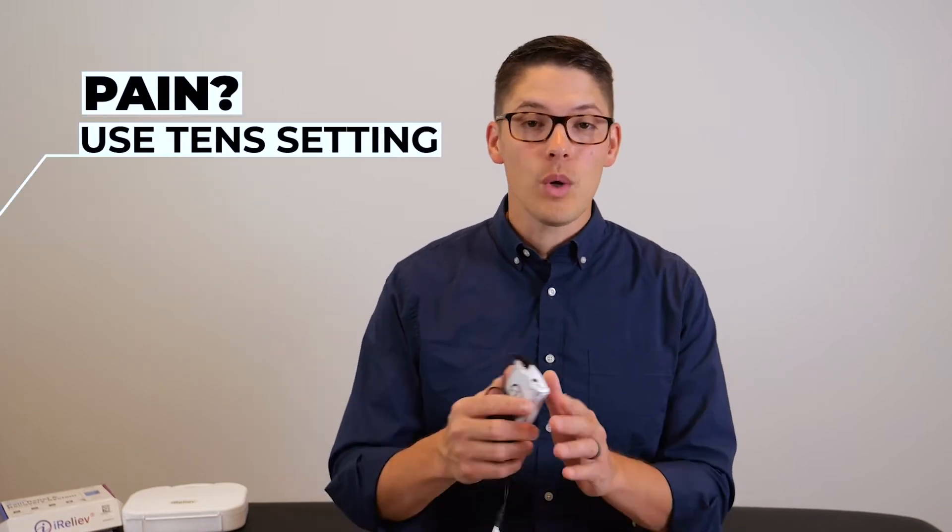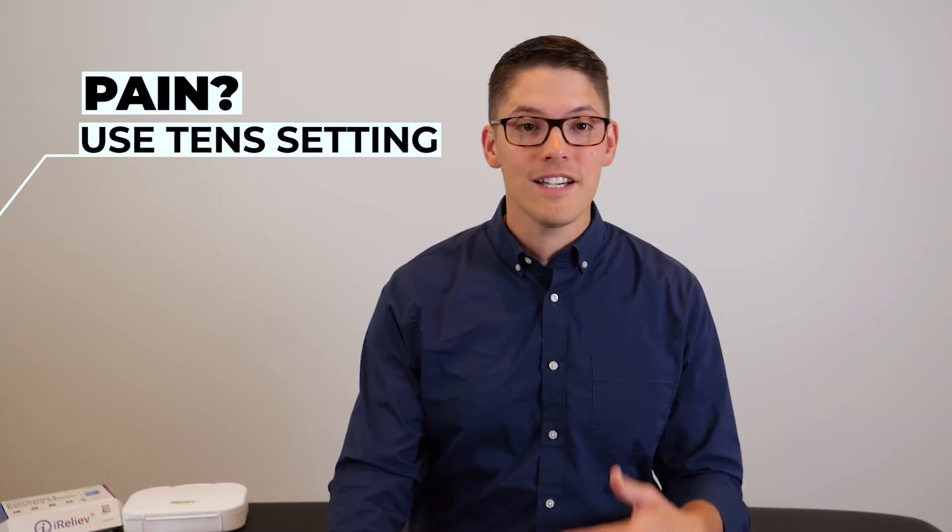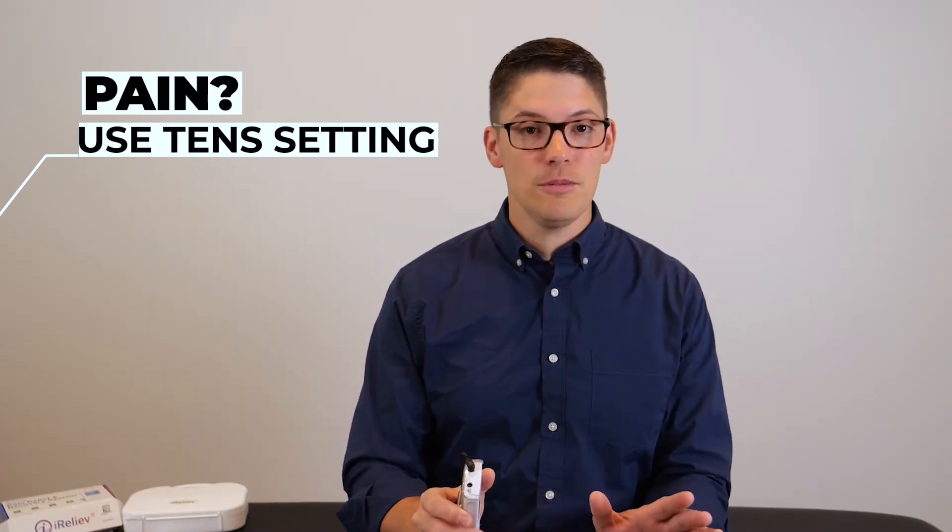Now, if your doctor or PT recommended a unit like this to help with pain, you can simply focus on the TENS setting because we really don't want the muscles to contract if our goal is just to decrease pain.